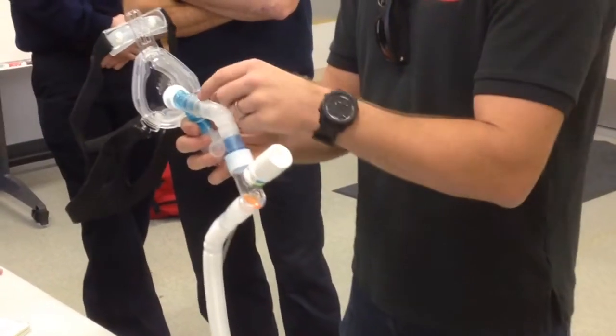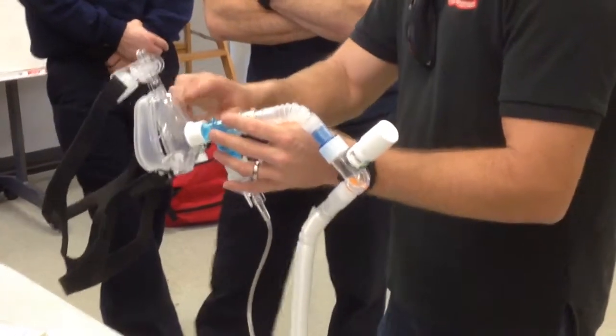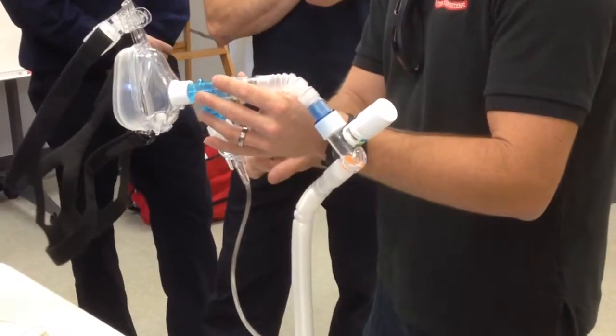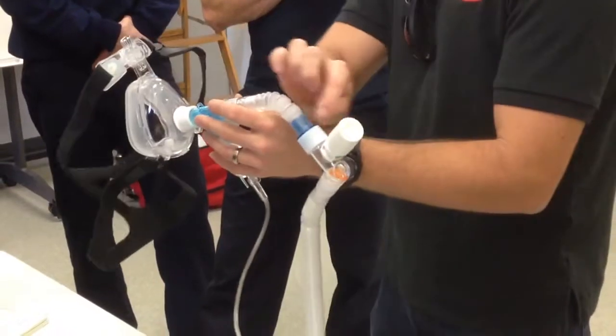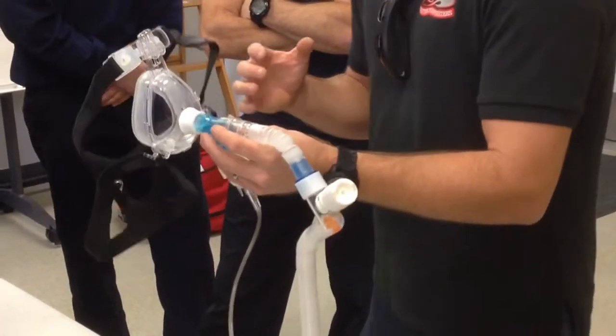This pressure coming in, this volume coming in, is going to override that, and they're going to get mainly oxygen, and it's going to knock this medication back down. It's going to try to aerosolize, but then it's going to knock it back down, because this volume is so much more than this, okay?